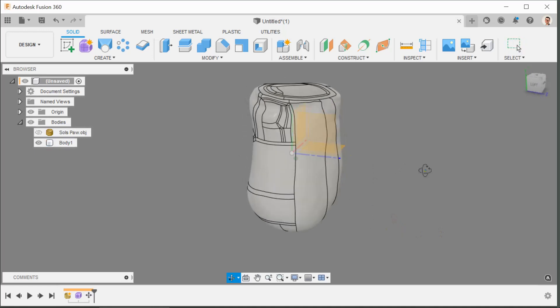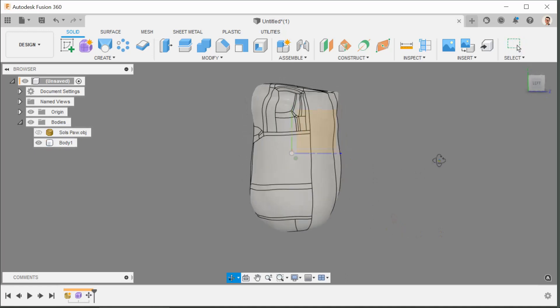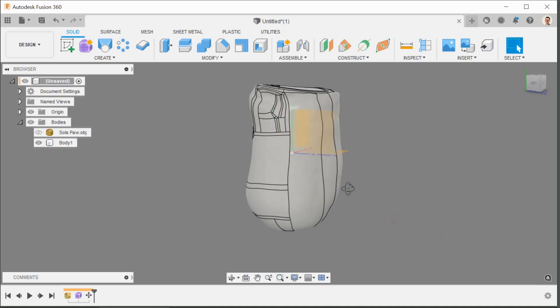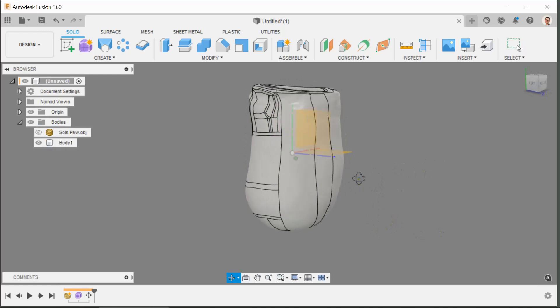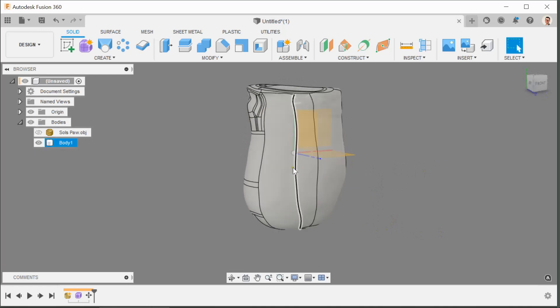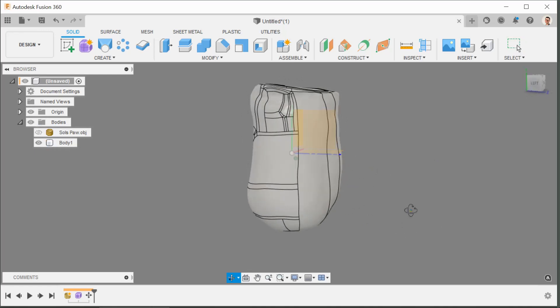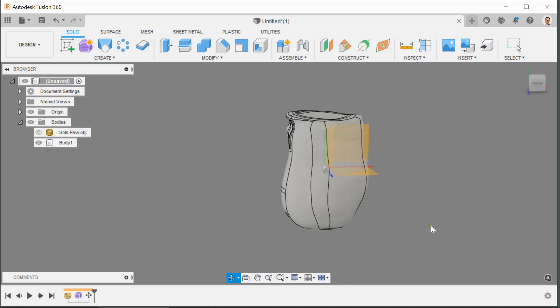So we now have an aligned... I know that this soft fleshy part here is the inside. This would be Sol's wrist here. The elbow, if his arm came down, would bend, move up and down just like this. So the origin served its purpose for now so we'll get it back out of the way.